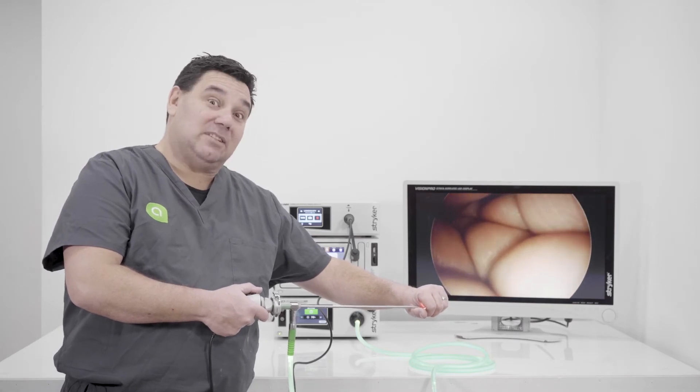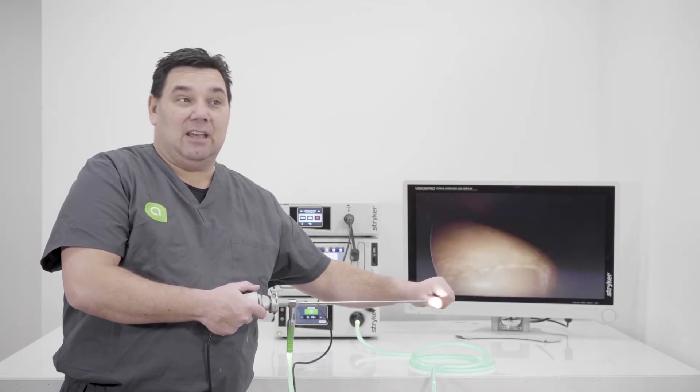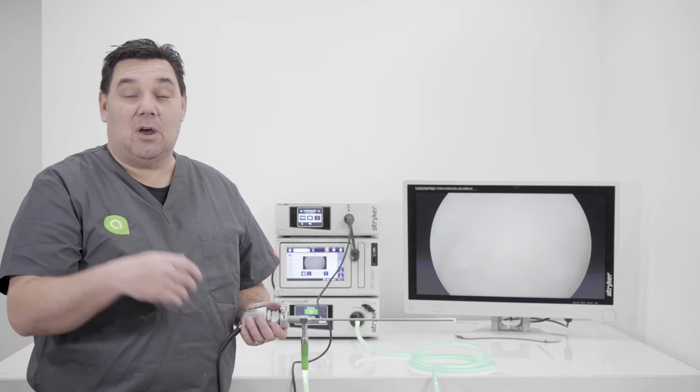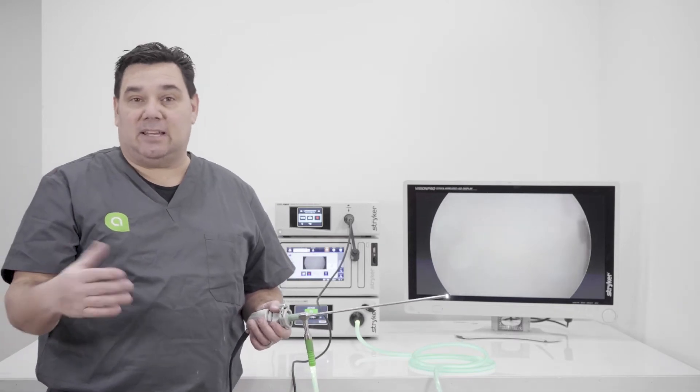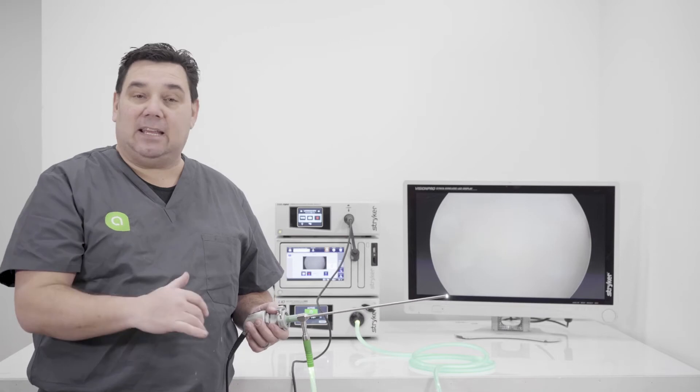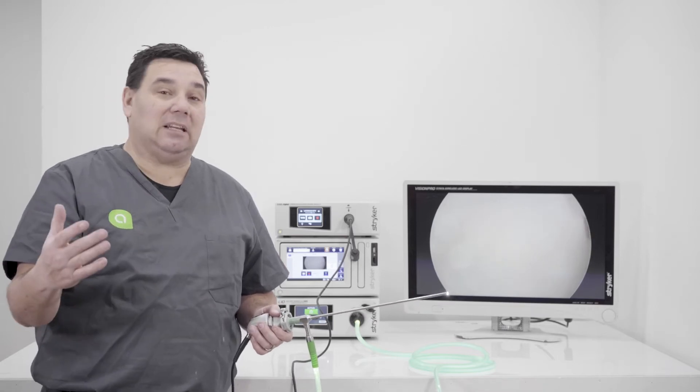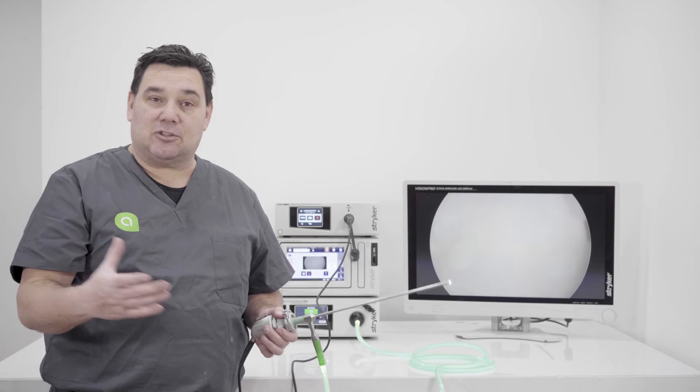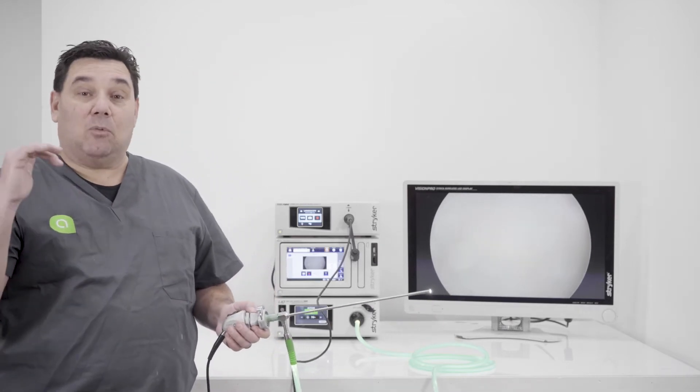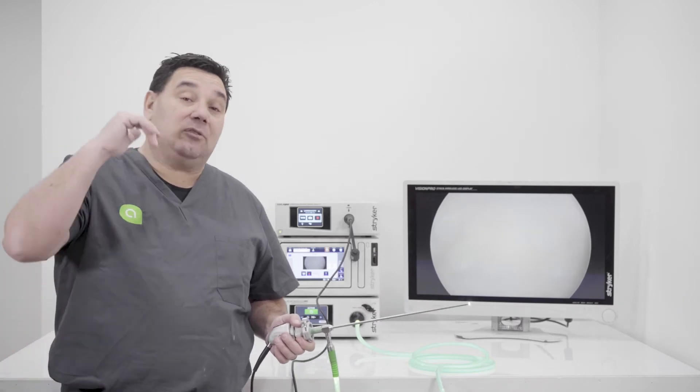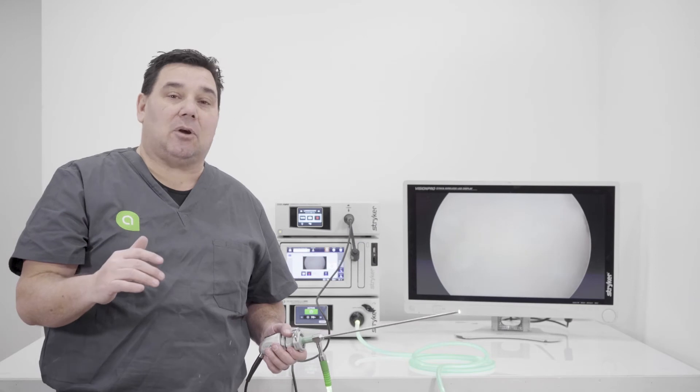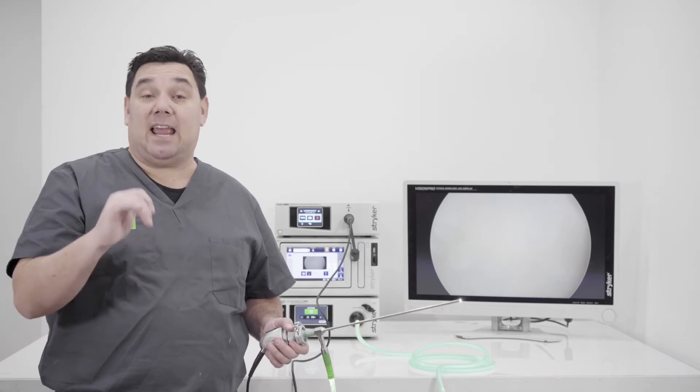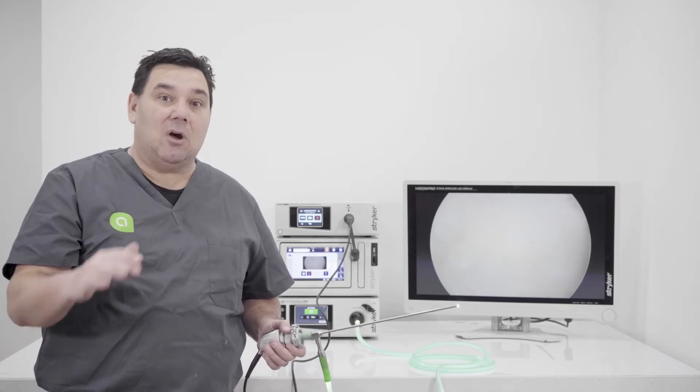So once it goes into the abdomen, you're going to be able to see that image. If you wouldn't have a light source, or you wouldn't have a light cable, you wouldn't be able to see anything. Again, it'd be like walking into a dark room without any lights on, and you wouldn't want to trip and fall over the furniture. So one of the things you want to start off with when you're doing any type of video procedure is once you get all the components set up, and before you actually start the surgery, you're going to want the camera to perform a white balance.